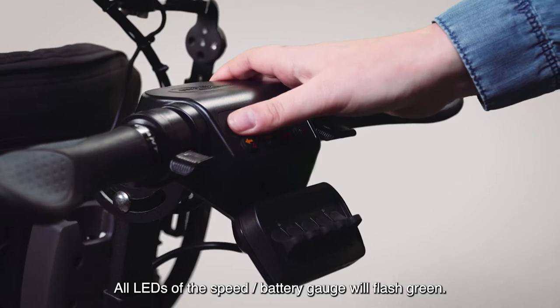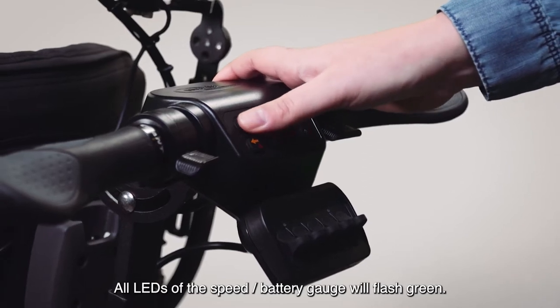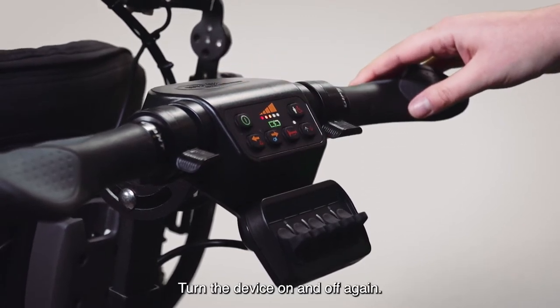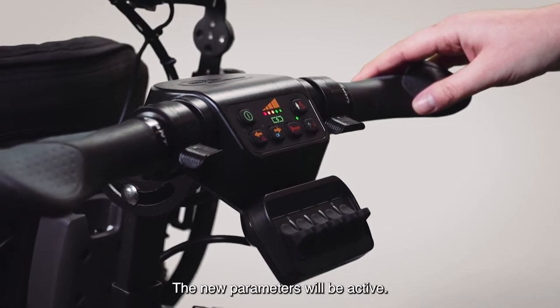All LEDs of the speed battery gauge will flash green. Turn the device on and off again. The new parameters will be active.